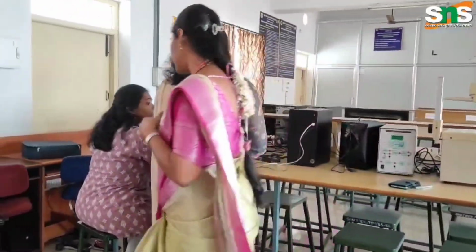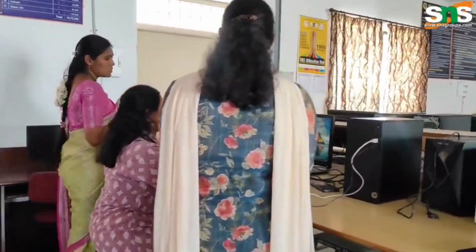Hi students, shall we start this experiment? Yes. So what is the name of this experiment? What are we going to see today? Respiratory parameter measurement using spirometer. Yes, fine. Before we begin, tell me what is the importance of studying this experiment? Why do we need this spirometer device? Spirometer is an instrument which is used to measure lung volume and capacities. It helps us to check how well the lung is functioning, and it is used to check respiratory diseases like obstructive and restrictive diseases, asthma, etc.